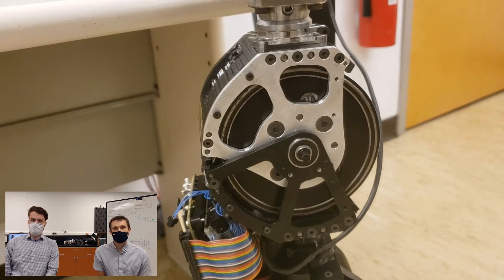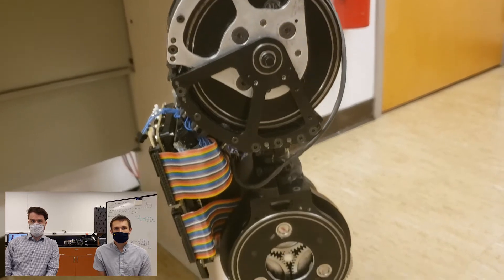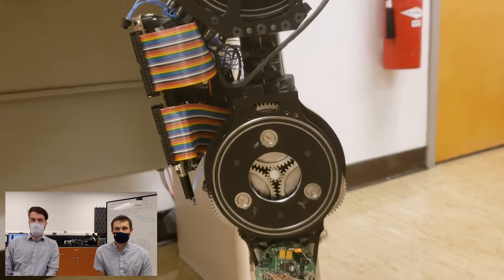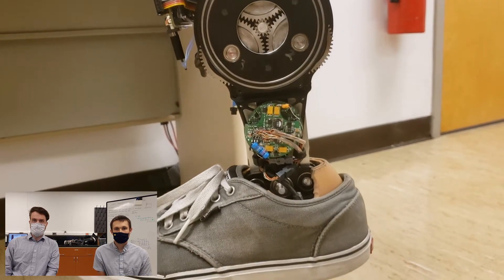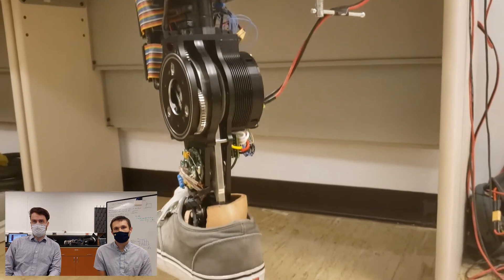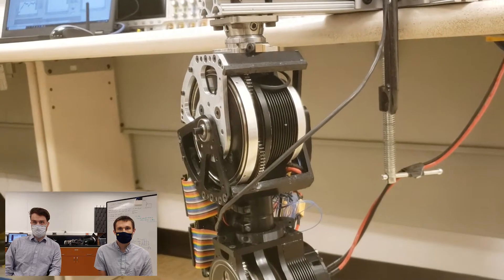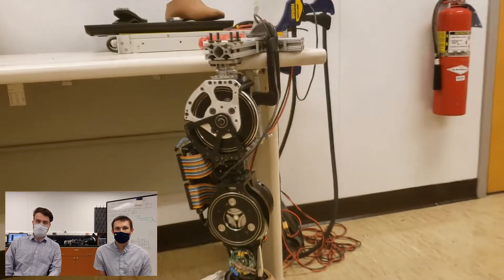This prosthesis is instrumented with a thigh-mounted IMU, which is used to compute the phase variable in many of our lab's controllers. Frameless knee and ankle motors are built into a custom-designed housing with 22-to-1-stepped planetary gear sets. This quasi-direct drive architecture allows for excellent backdrivability, which we'll be demonstrating shortly. This backdrivability presents a lot of advantages, including open-loop torque control, regenerative braking, reduced audible noise due to power transmission, and greater compliance during impact events, which results in a more comfortable user experience.